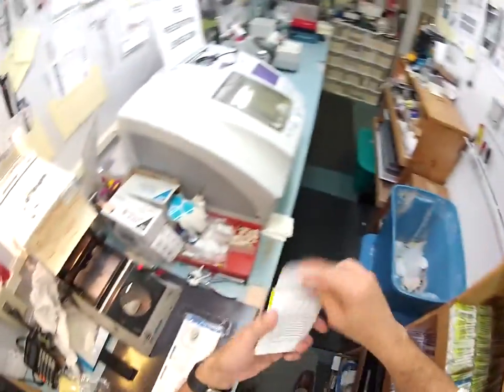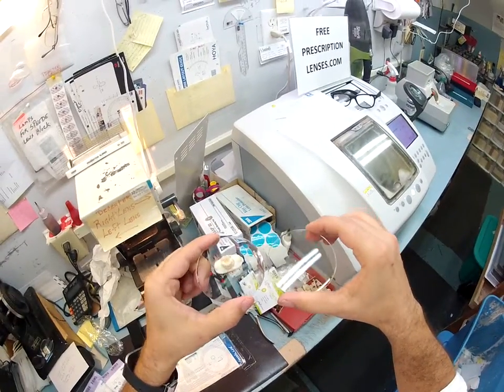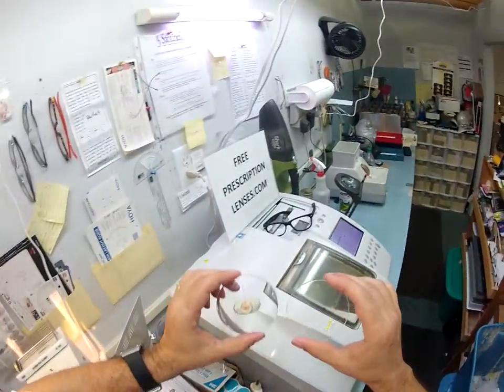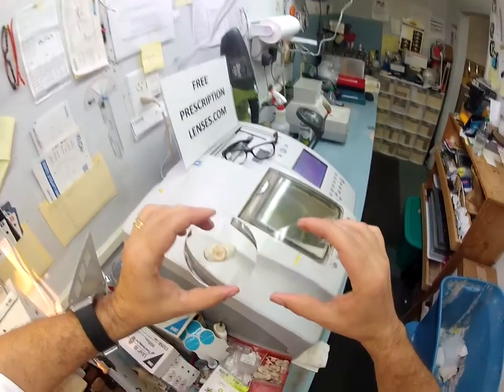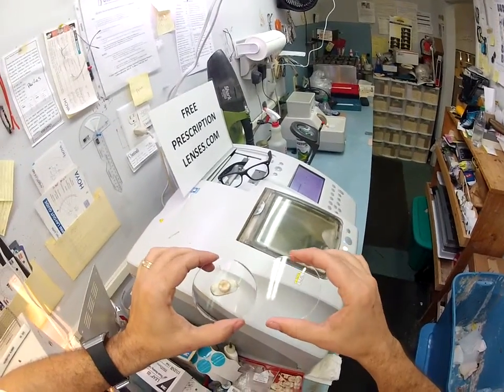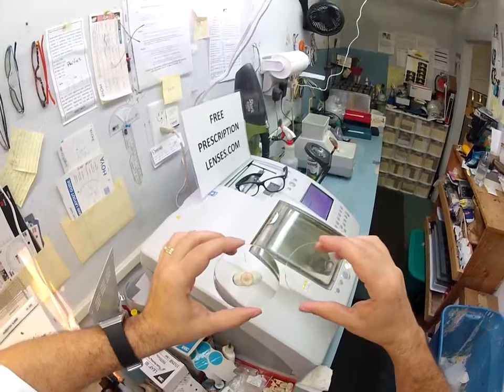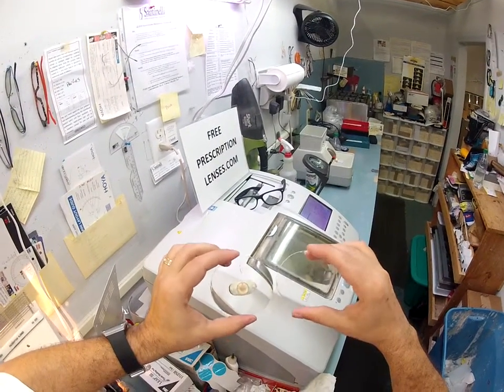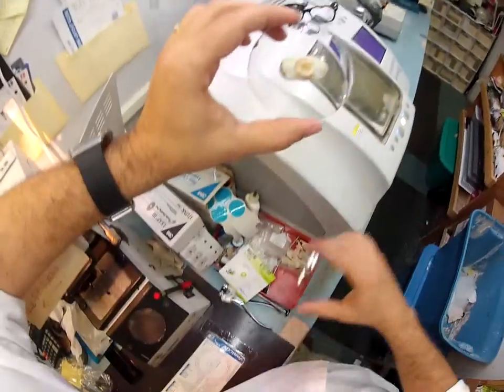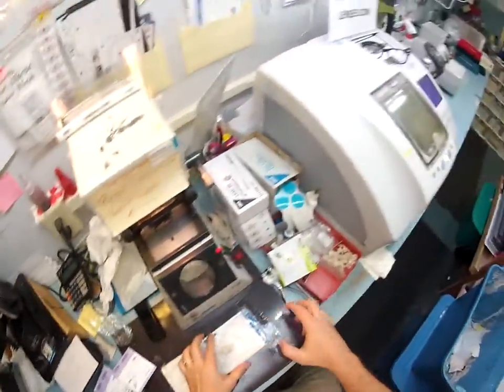Anti-glare eliminates glare when driving at night, particularly driving at night in the rain, from oncoming lights, but also street lights, stoplights, computer screens, and fluorescent lights. It's also an anti-reflection lens. You can see how the lens on the right reflects back the fluorescent lights above me — the lens on the left does not. So when someone's looking at you, they're not looking at their reflection in your lens. And if someone takes a picture with a flash, you don't see the flash lit up in the lens.